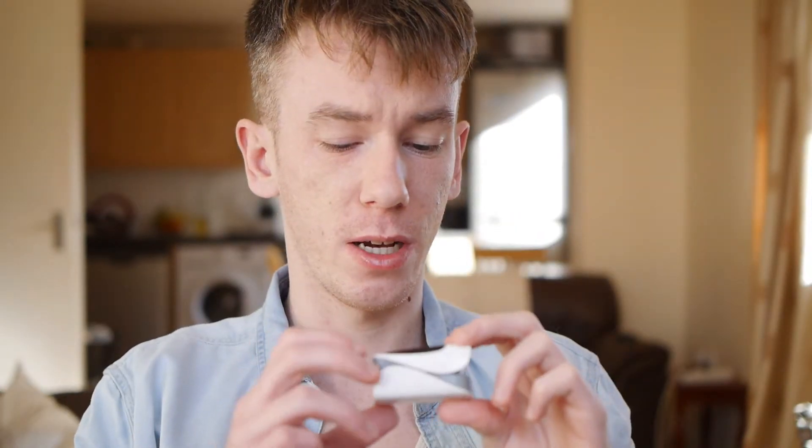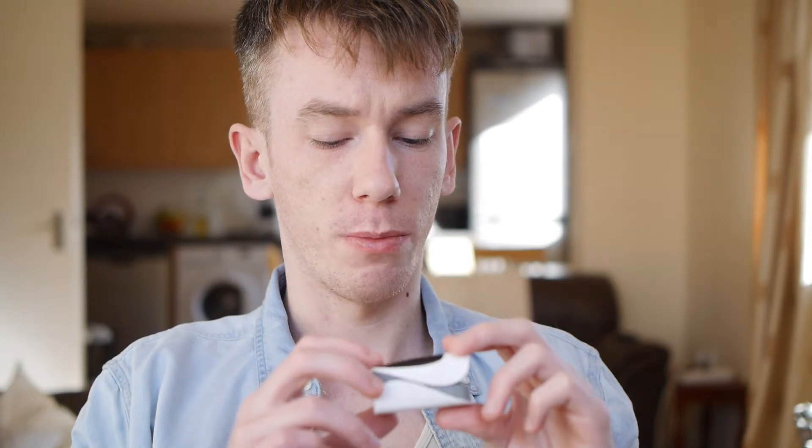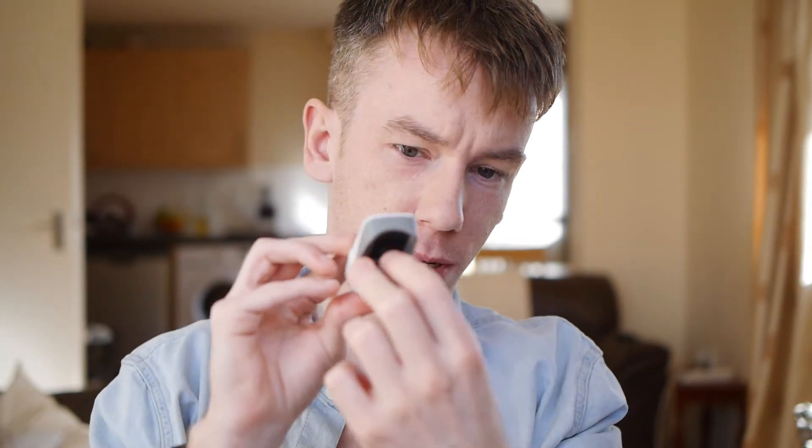It's just a cool little thing to have, just in case — peace of mind. It would have helped me after the flu to make sure my lungs weren't dying. So here's how it works: it knows how much oxygen is in your blood because it has this red light — it also has a sensor at the top. Depending on how much red light makes it through your finger and into the sensor, it knows how much oxygen is in your blood. It also detects your pulse because there's a pulse going through your finger, so it can detect that pretty accurately.